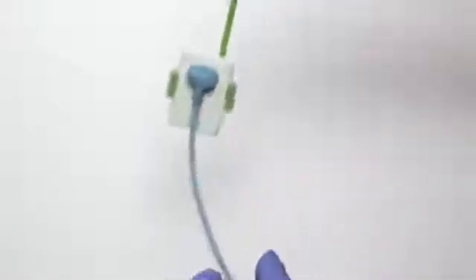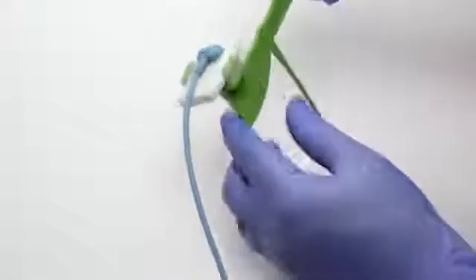Each sensor holder has locking bumpers. Wiggle the holder up or down over the bumpers until you achieve the correct bite plane.